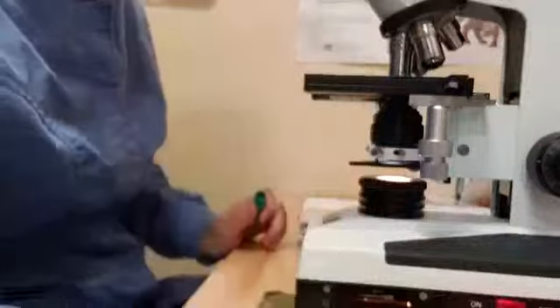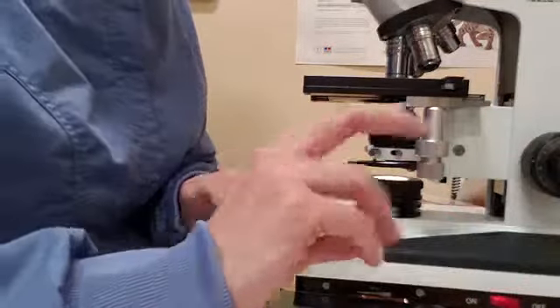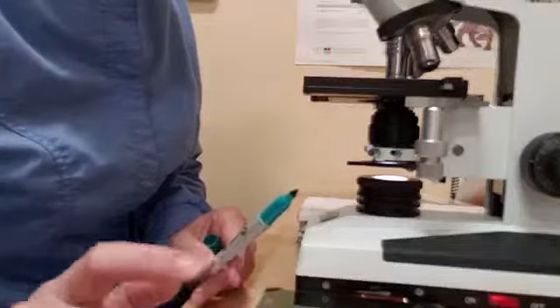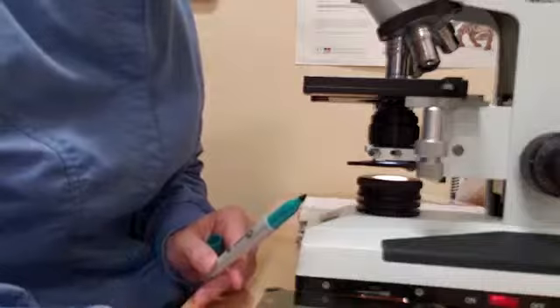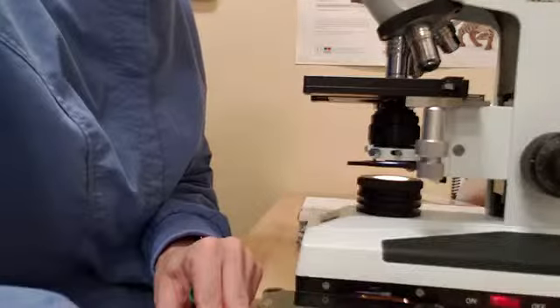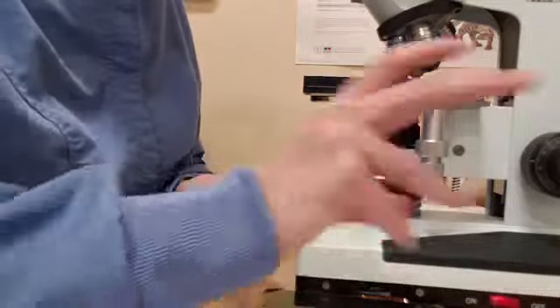So what we want to do is we want to average these three numbers. So we'll do that. We have our calculator here. So we want to do 40 plus 32 plus 50. We want to divide that by 3 to get our average. So we have 40.6. So we'll write that down, 40.6. We want to multiply that by 10 to the third power, which is also 1,000.